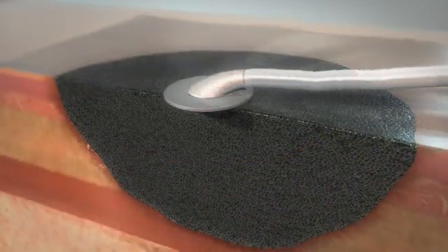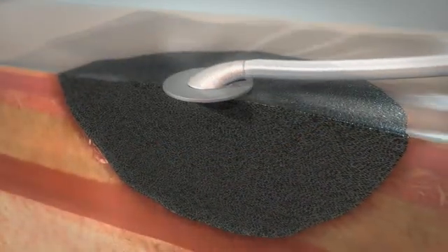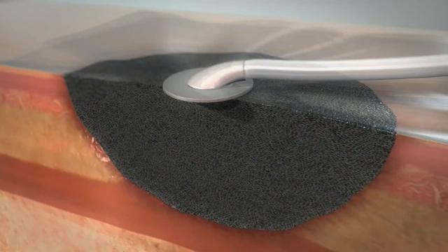The application of negative pressure when delivered through VAC therapy induces both a physical and biological response.